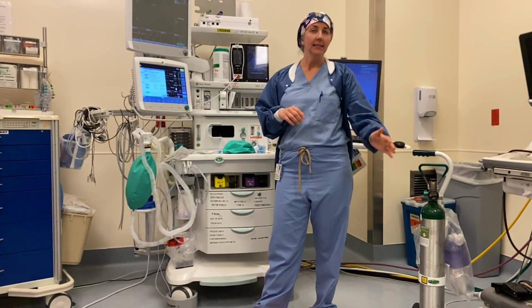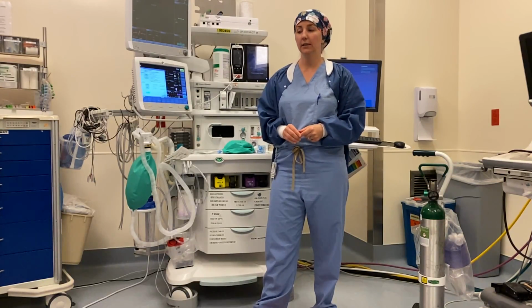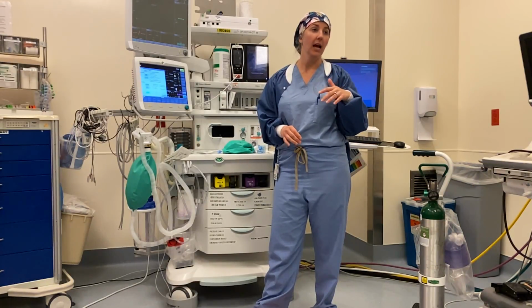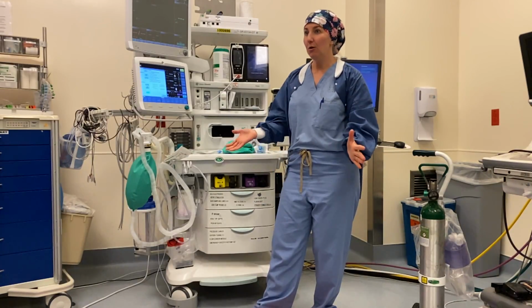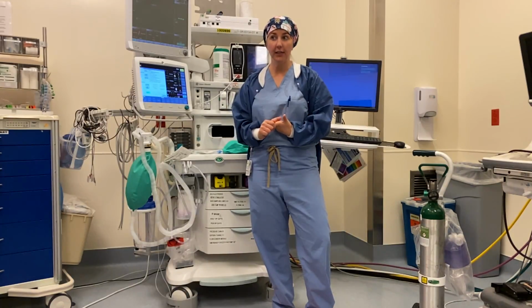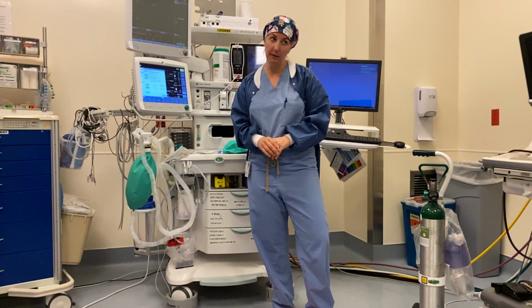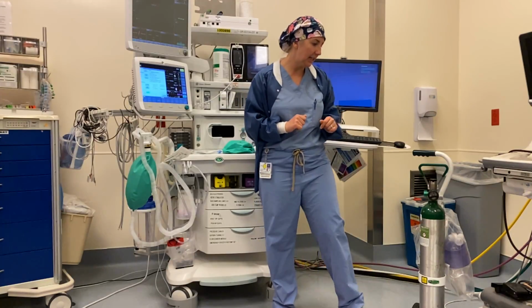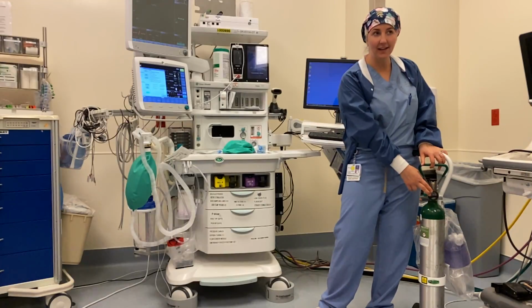So the scenario is that I say, hey, there's a patient in the emergency room who is COVID positive, and we need to intubate them and have you take care of them in OR 7. Please go get it ready. And you're like, okay, great. The first thing I want you to do is start thinking about yourself. So first, make sure you have all of the PPE that you need to be safe. Then once you go into the operating room, the very first thing I want you to do is locate the oxygen tank and make sure that it has oxygen in it.